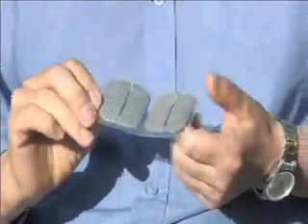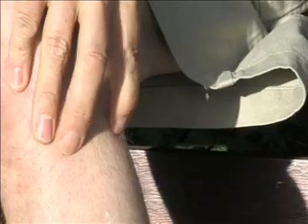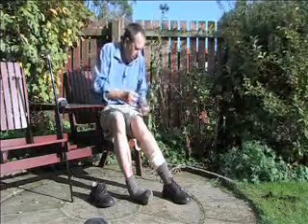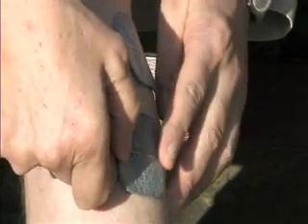Then I've got to put my pads on. There's a bone there, but you get used to which bone it is. You press the bone and you actually make a white mark. You see the white mark? You put your pad over it to the top of the white mark. You get your second pad off and put it halfway down the first one. This is the position of the pads that I use, but on different people it can vary.